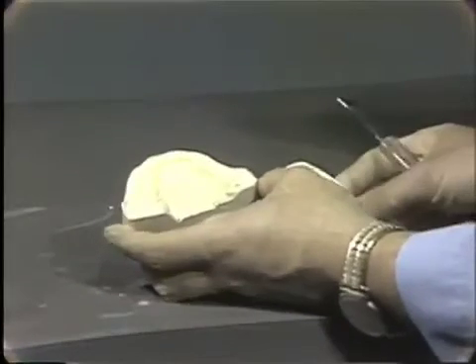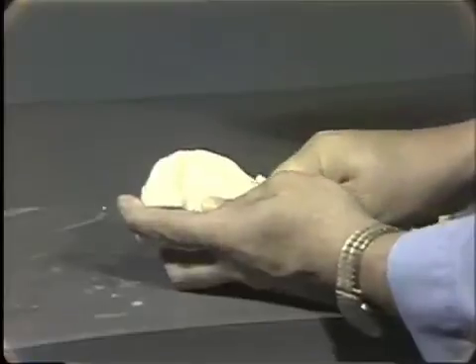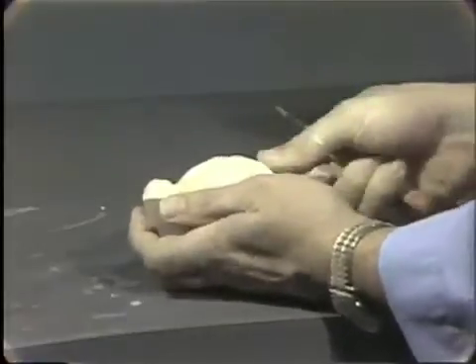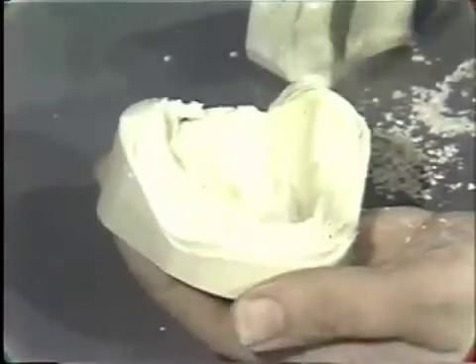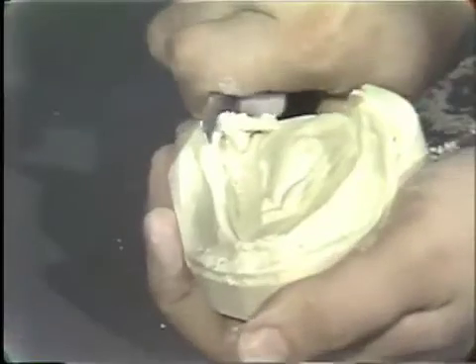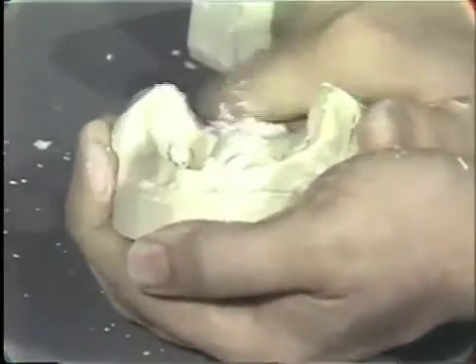Now, similarly, for the lower model, one should also reduce the boxing edge. Following completely around the flange areas, forming the boxing edge or the landing area and joining that out. In the area of the tongue space where you filled this in, you should again try to remove large amounts of stone to give yourself room to get into this area for working at a later date.